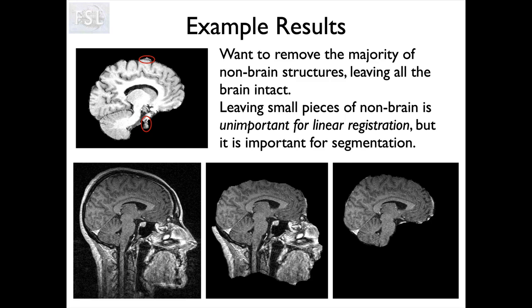In the bottom row you can see the original image on the left, and in the middle is a failure — a brain extraction that is not acceptable because there's clearly a lot of non-brain material left behind, and at the top it has actually taken off some of the brain. We're not happy with that and it would not be good enough for registration. Whereas on the right-hand side you can still see small bits of non-brain material left over, but that's totally fine and would work very well for registration purposes.